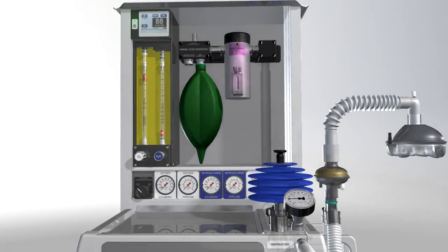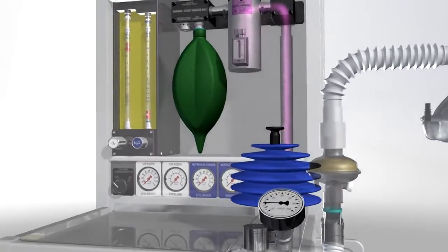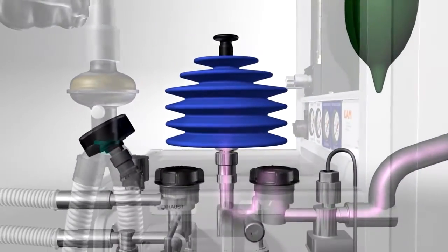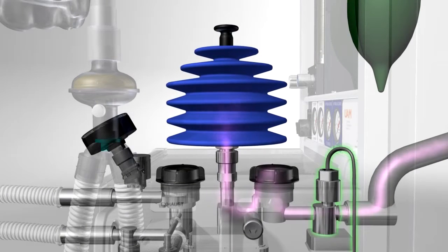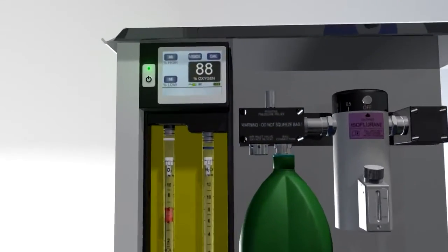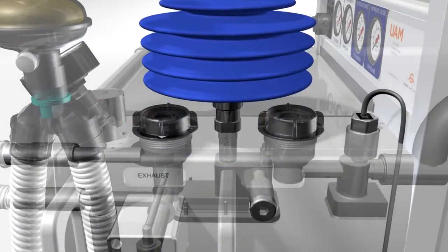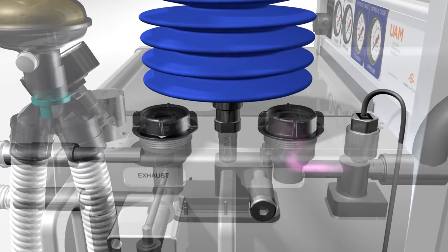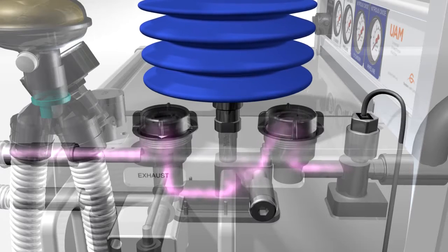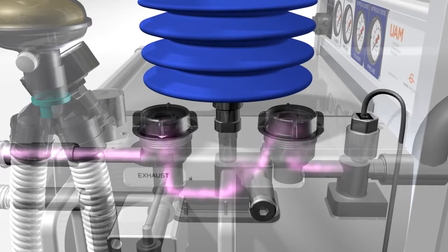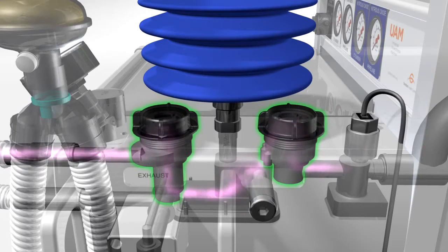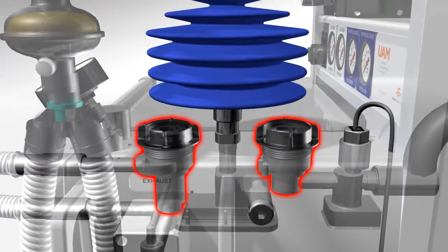The anesthetic gas flows from the back bar at low pressure to the breathing block and the bellows. A sensor reads the oxygen concentration of the gas passing to the patient, and the reading is displayed on the oxygen monitor screen. As the gas continues from the oxygen sensor, it passes the first one-way valve, then the bellows chamber or ventilator, followed by the second one-way valve. During spontaneous breathing, both non-return valves open for inspiration and close during expiration.